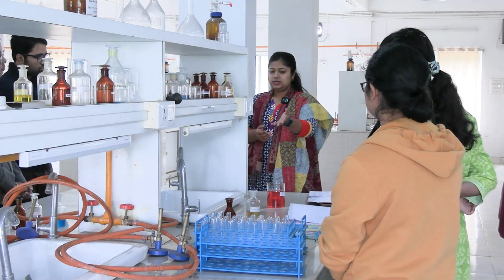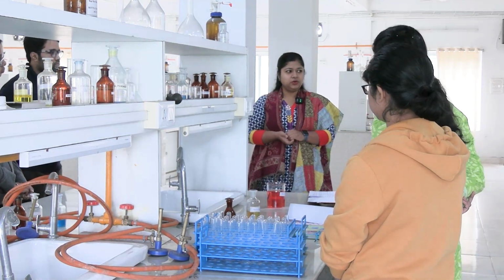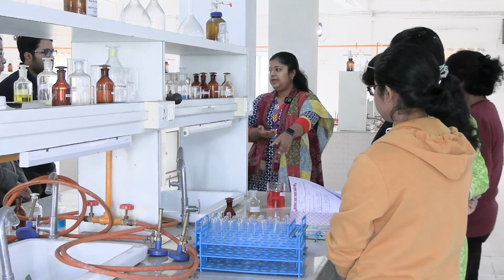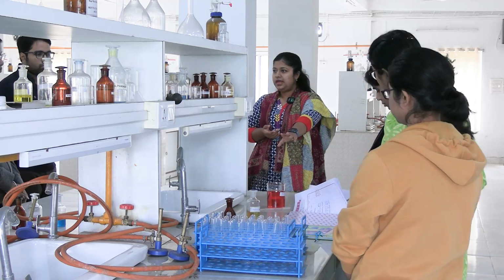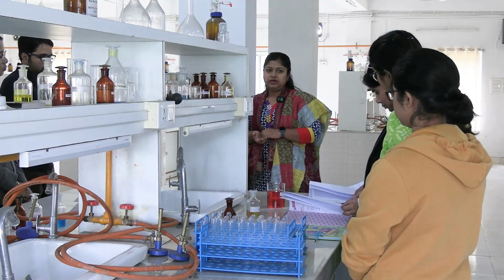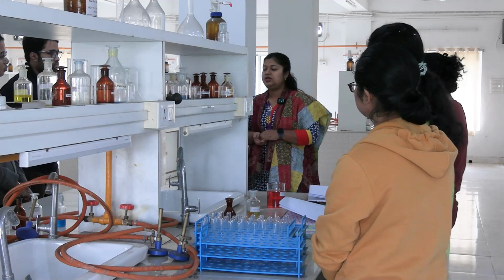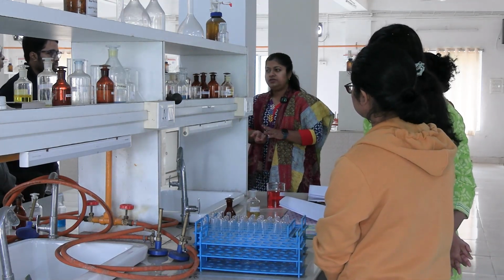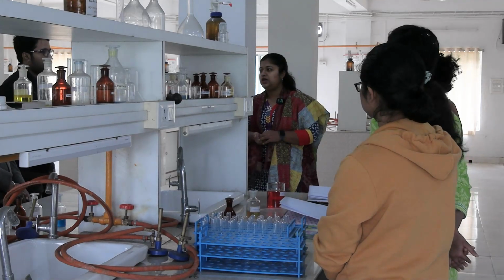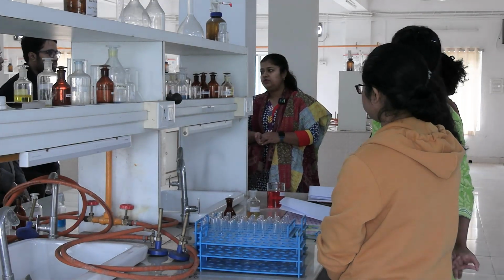In case of intact RBCs, we might need to heat the sample initially to rupture the RBCs and release hemoglobin. In hemoglobinuria the urine will be pinkish or light red in color, whereas in gross hematuria it would be bright red. This sample is bright red, and by seeing it, it seems like blood in urine. But there are other drugs which also cause red urine. Not always hematuria, but rifampicin is a drug which leads to orange or reddish urine. So that urine is not because of hematuria, it is because of rifampicin use. So we need to take history. If we find an indoor patient passing red urine in the urine bag, we might be confused whether it is hematuria or the patient is on rifampicin. So we have to take proper history.